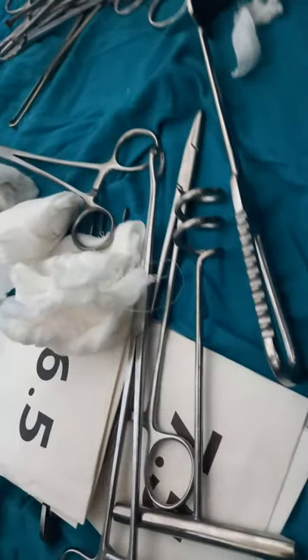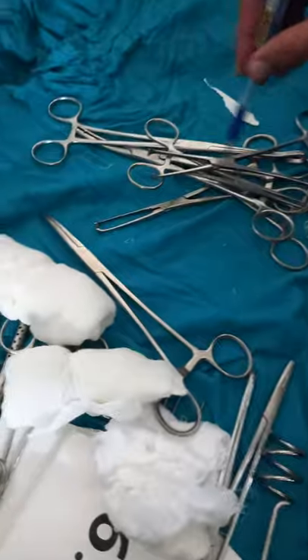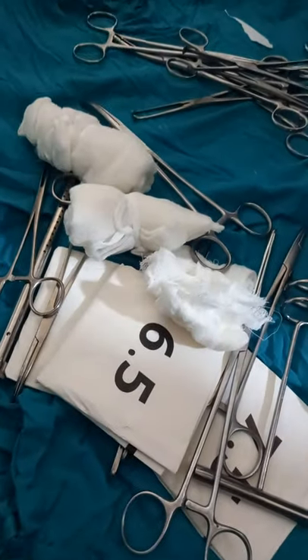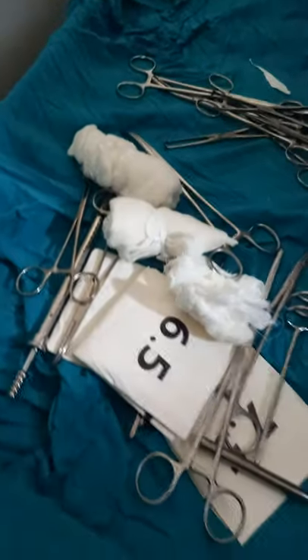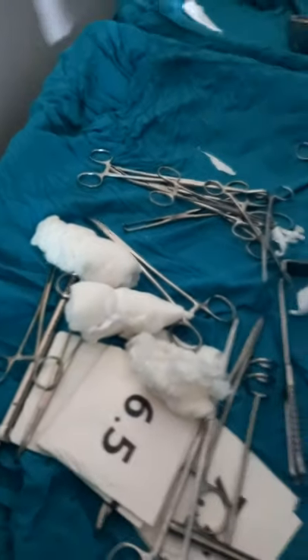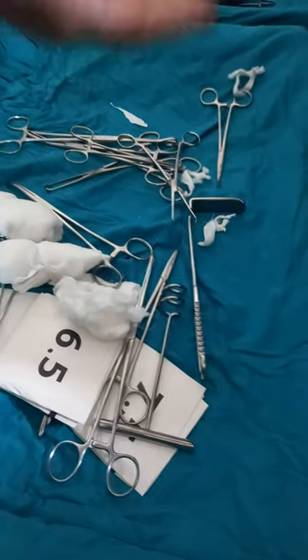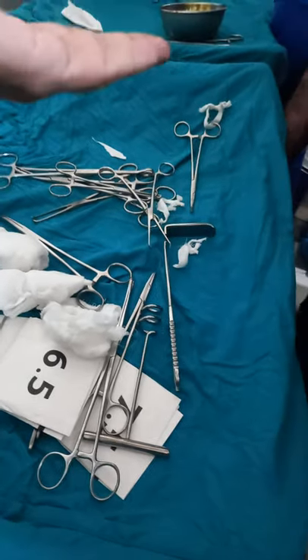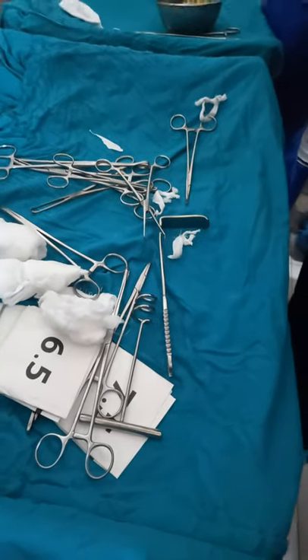What is this? The tooth forceps. The tooth forceps — does anyone use it? Make sure to put the teeth into the back, get in the back and grip them.